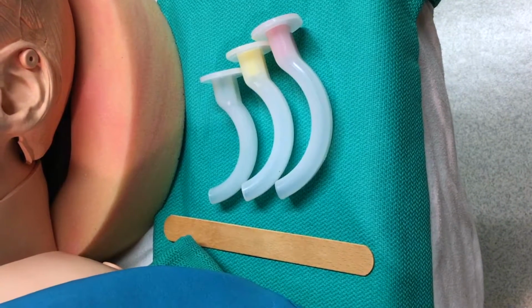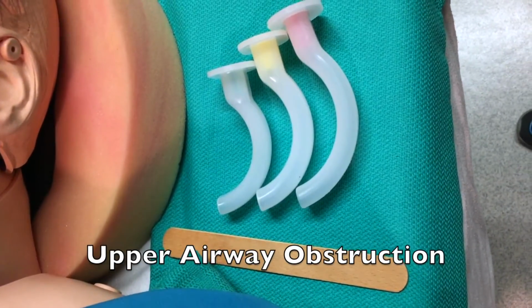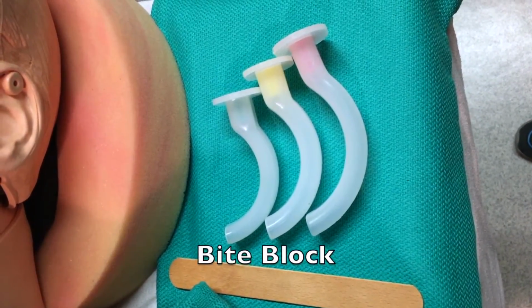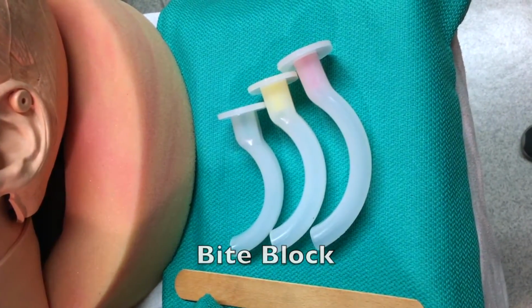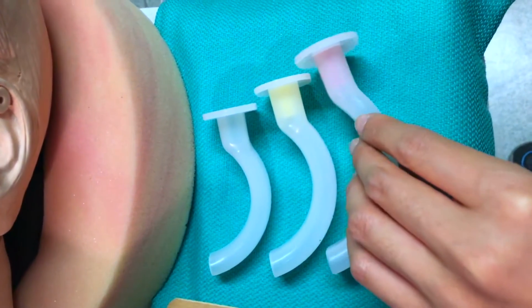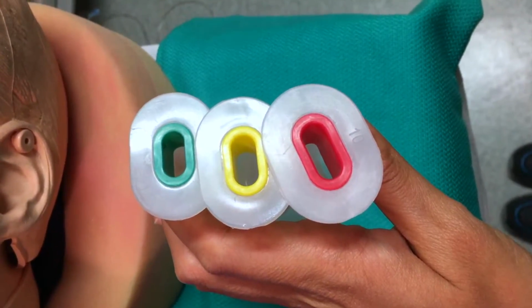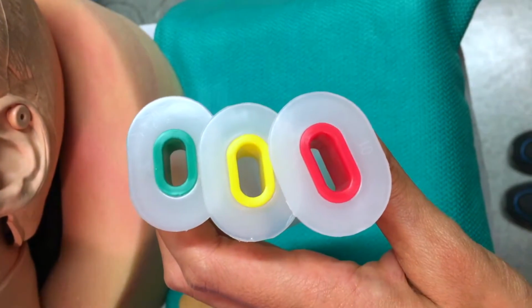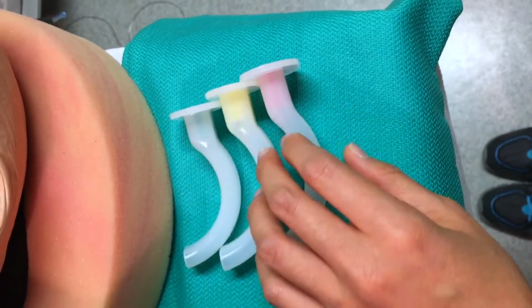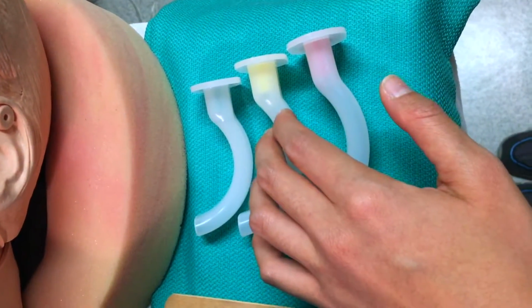I'm going to be talking a little bit about oropharyngeal airways, or oral airways as they are called. They're usually used for upper airway obstruction, absent airway reflexes, like when the patient's unconscious, or as a bite block, especially if they're biting down on their ET tube. So you can see there are 3 different sizes. This is an 8, a 9, and a 10. And they're also color coded, so you can see green, yellow, red. I like it because it's like a stoplight. Green is go, yellow is slow down, and red is stop. So it's an easy way to memorize the colors with the sizes. I think the average size is usually the 9 in the middle.